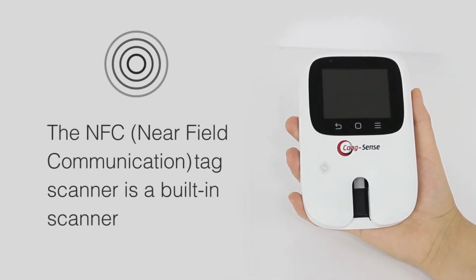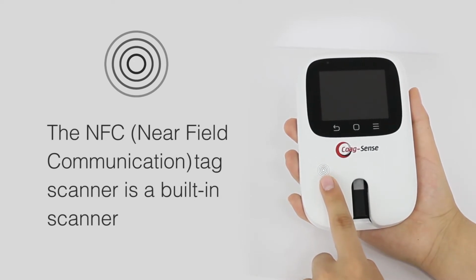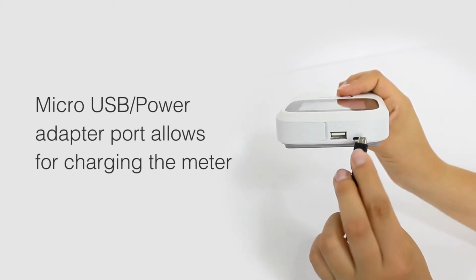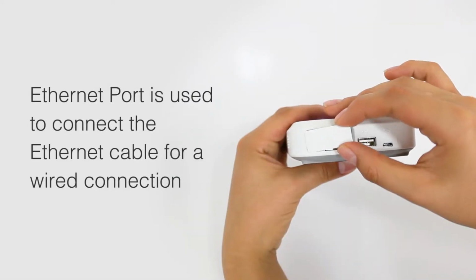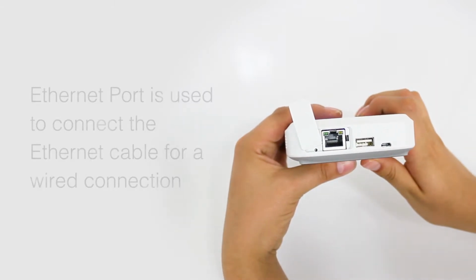The NFC (Near Field Communication) Tag Scanner is a built-in scanner that is used to scan the NFC card containing the strip, control, and test strip data. The micro USB power adapter port is a micro USB port for the power adapter. The Ethernet port is used to connect the Ethernet cable for a wired connection. This port is provided with a port cover.